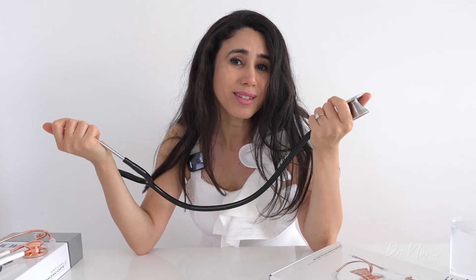So I'm excited to be checking out the MDF Procardial Stethoscope, which is the one that I have around my neck right now — just seeing what it looks like, how it feels, and more importantly how it sounds. I'll be taking you guys with me along for the ride.